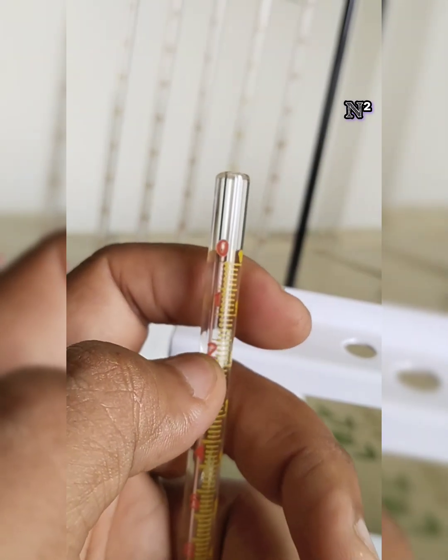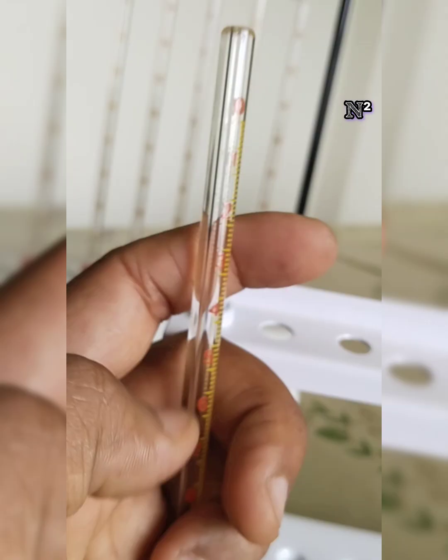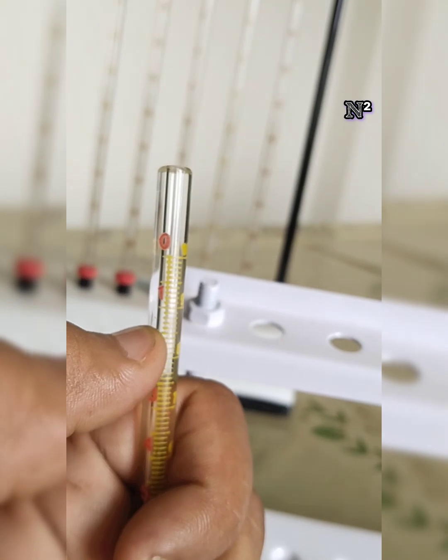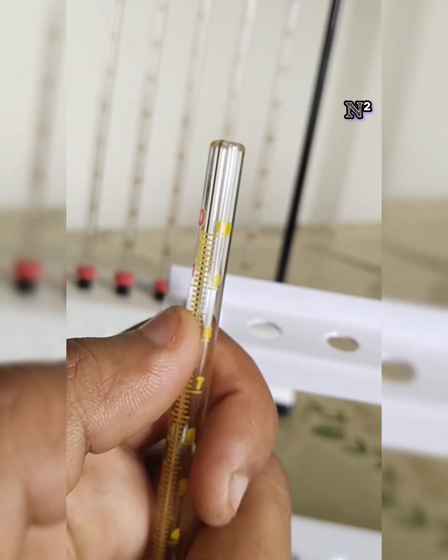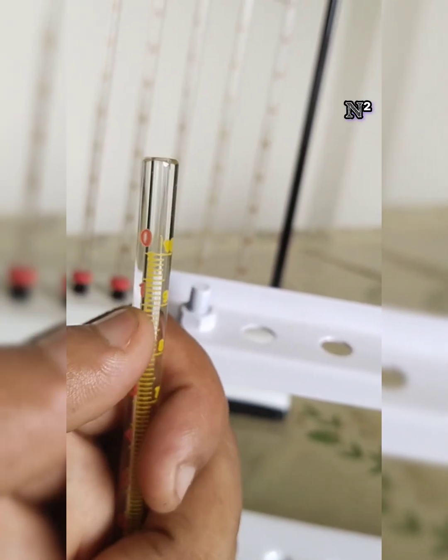The rouleau formation will also take place here, and the blood will gravitate down. The heavier components will be at the base and the lighter components at the top. Depending upon that, you measure the rouleau formation in millimeters, and you report the readings. That's the ESR for you.